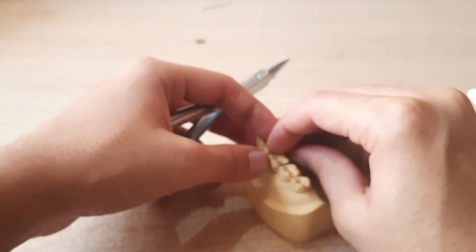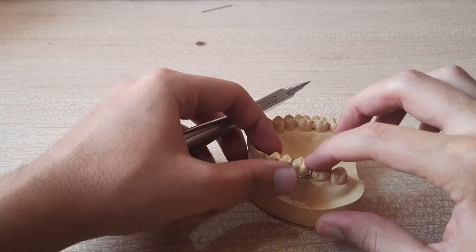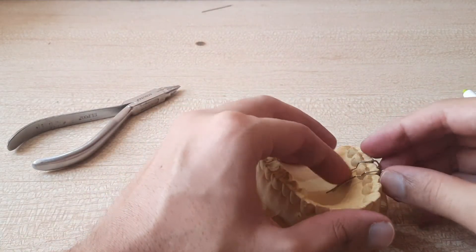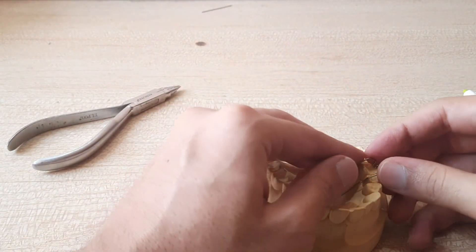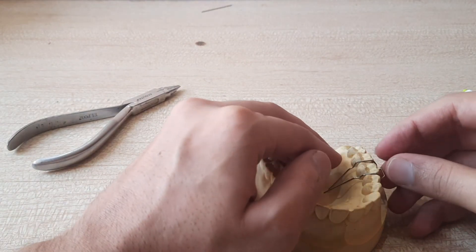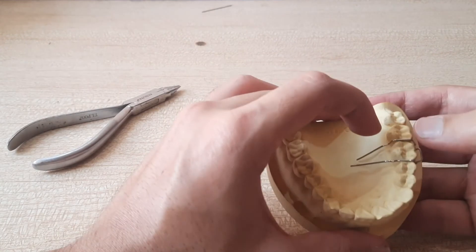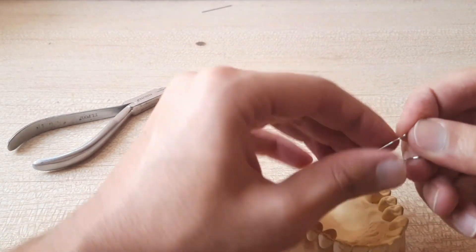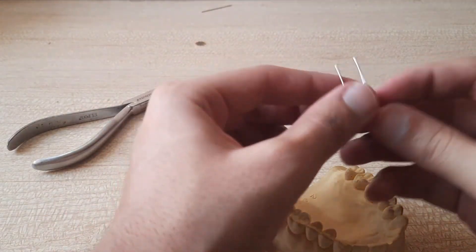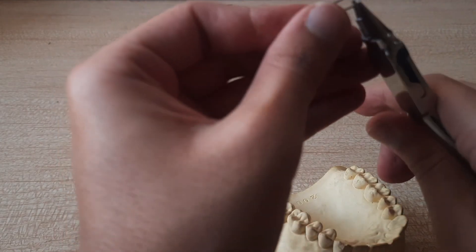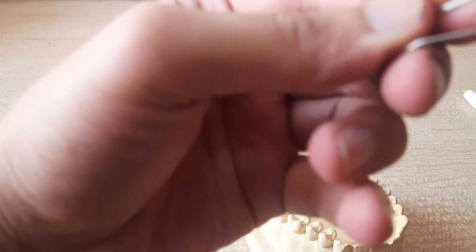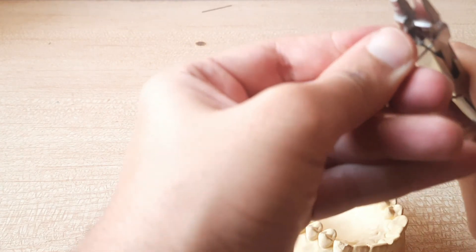Now checking it onto the cast. This is what we have. Only we have to adapt this thing. And then bend this one also in. And just compress it.